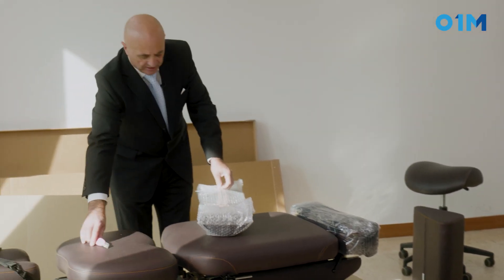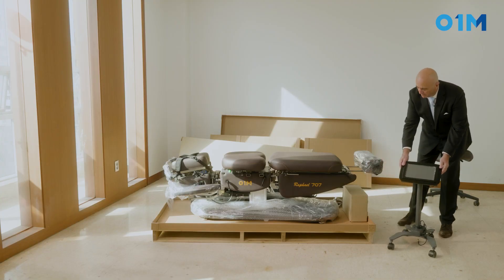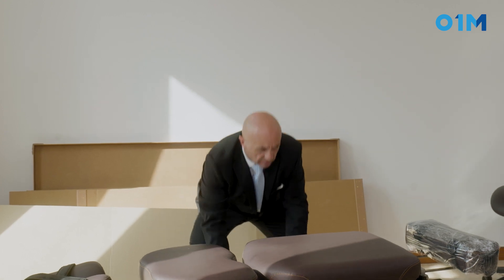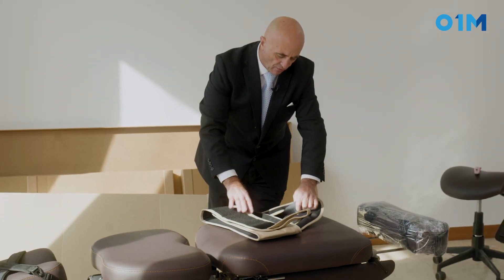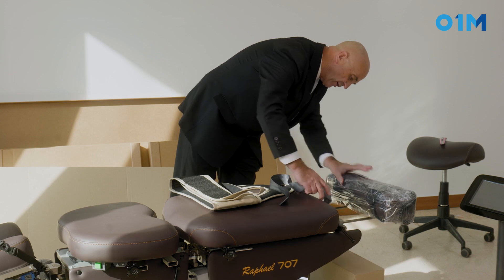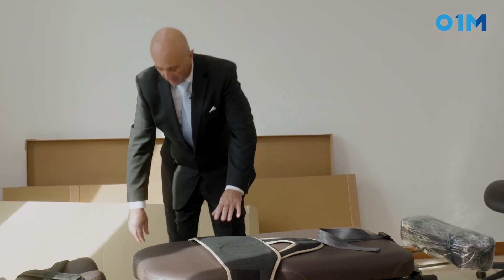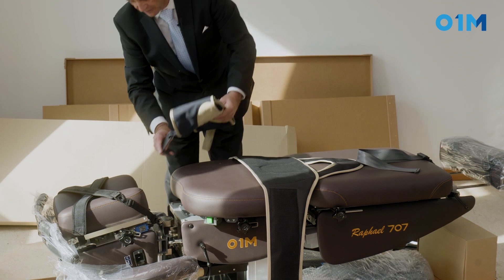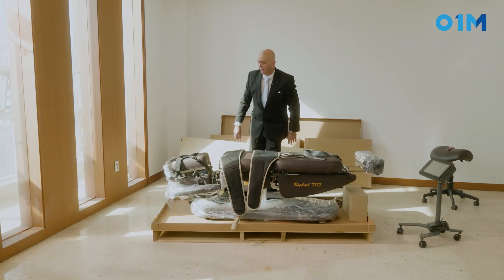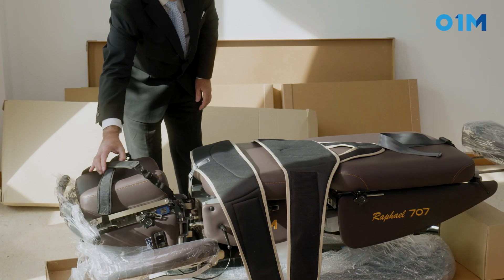We have another little bolster here. Here we have our touch screen that will go beside the table. We have a section which is basically the bracket for the long bar, and we're going to place it right here — it will go around the patient's pelvis. Then we have the thoracic brace that will go around the lower thoracic region.